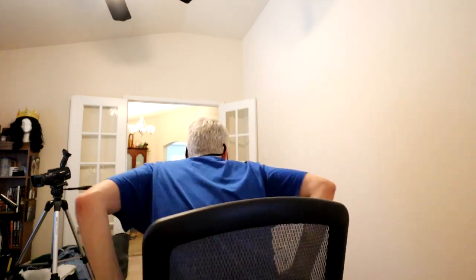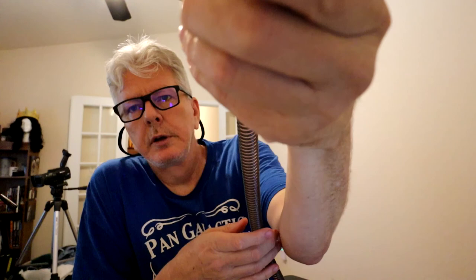We are all charged up and ready to go. Here's my AirSense 10 — I'll plug this in to the hose. And then just like the other CPAP cleaners similar to this, you press and hold the button for a few seconds and it starts. You can alternate between a 30-minute cleaning and a 20-minute cleaning. It's pretty quiet, but you can hear the air being pumped through there.